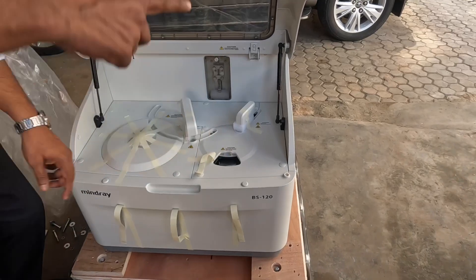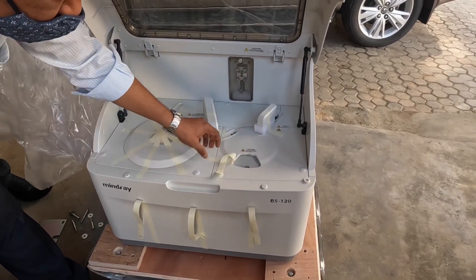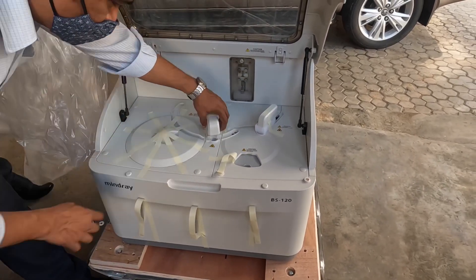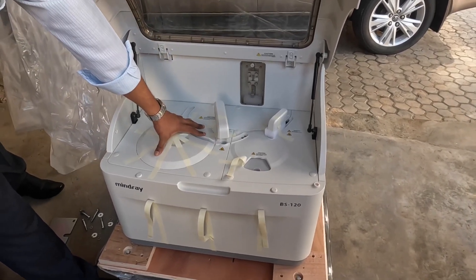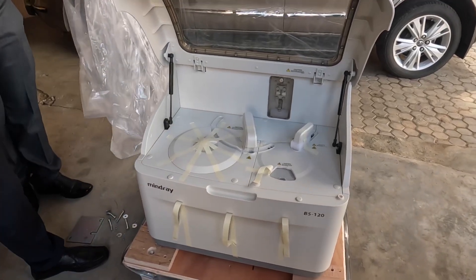This is where you're going to place the cuvettes, and this is where you're going to load the cuvettes — we can load five cuvettes at a time. This is the probe, which is a probe mixer, and this is a sample and reagent integrated probe. This area is a disc in which we can load both the samples as well as the reagents.